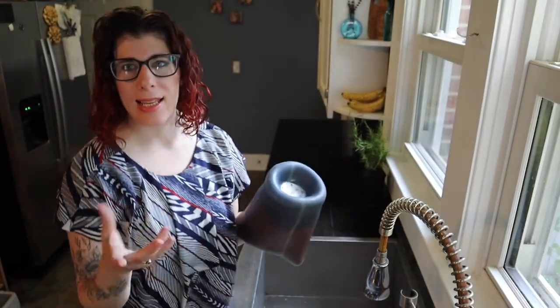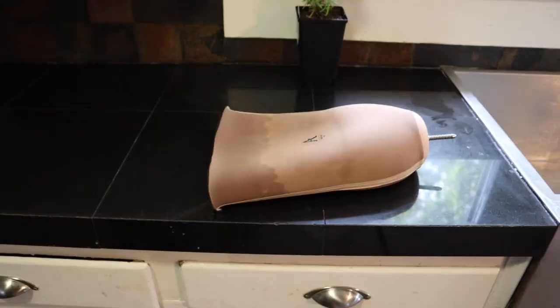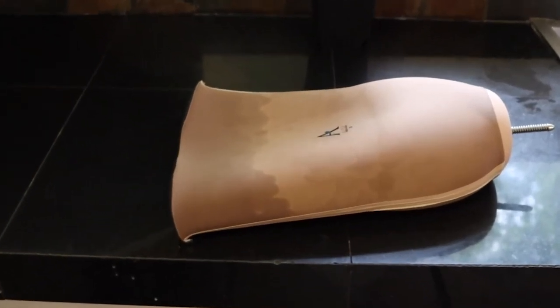If it's at the end of the day and you're done wearing your prosthesis, just turn it right side out and lay it flat on the counter to dry overnight. No need to worry about the outside getting wet. It is really important to wash liners every day just to prevent any possible skin irritation, rash, or infection, and also to prevent it from getting smelly.